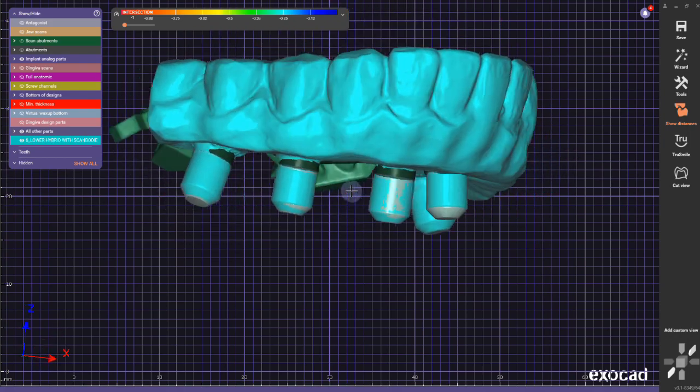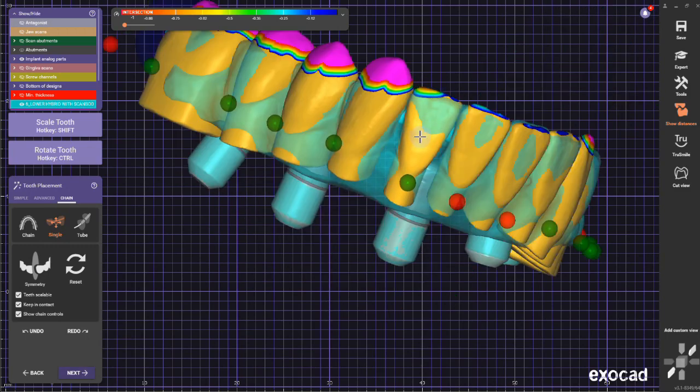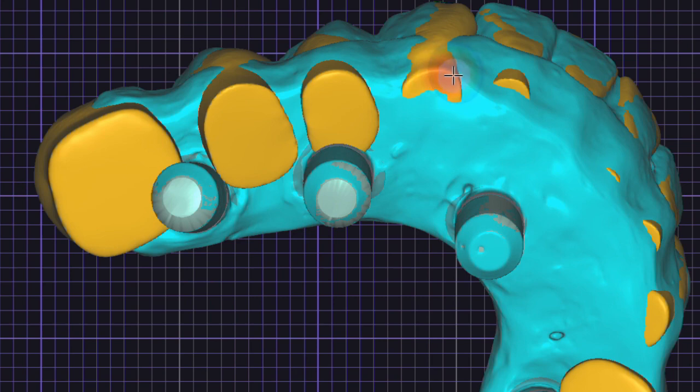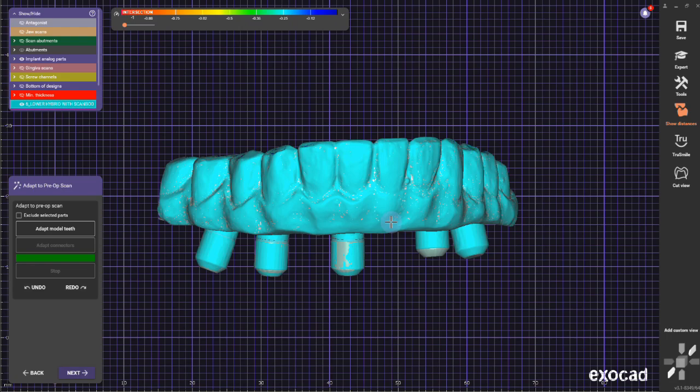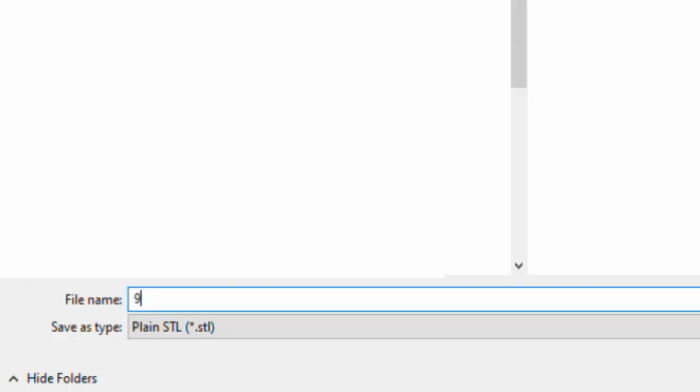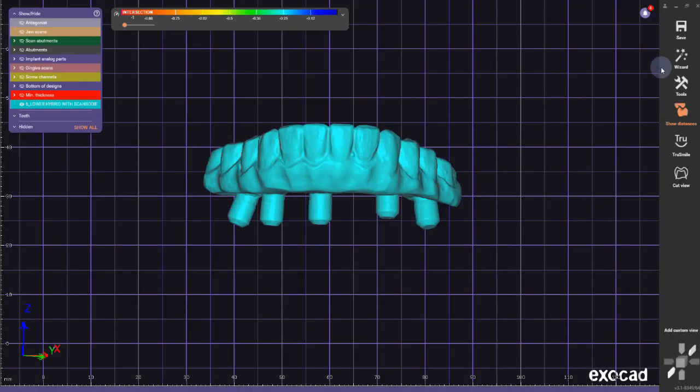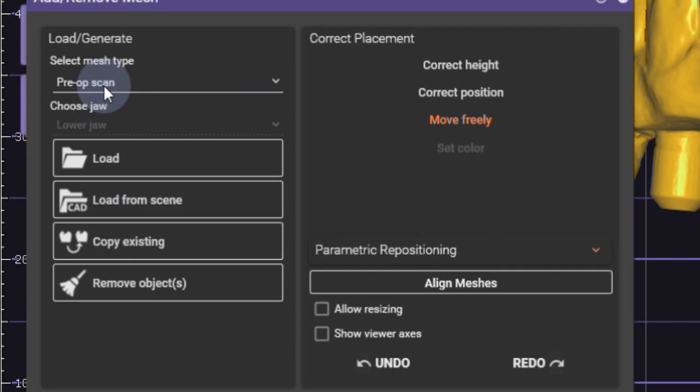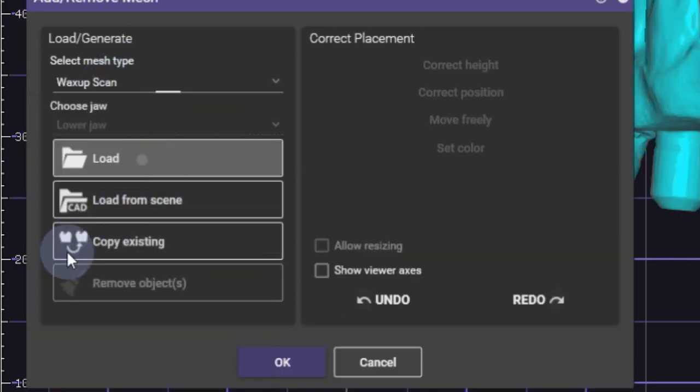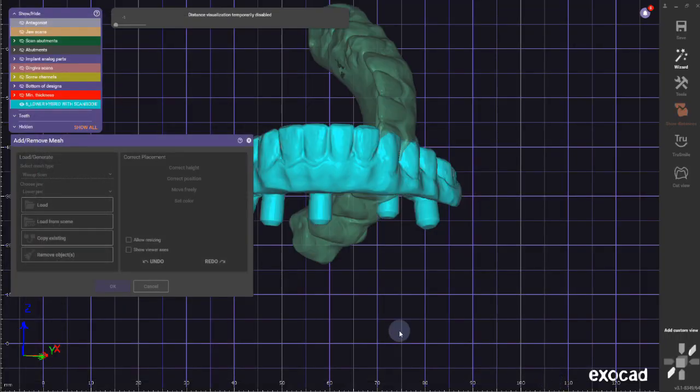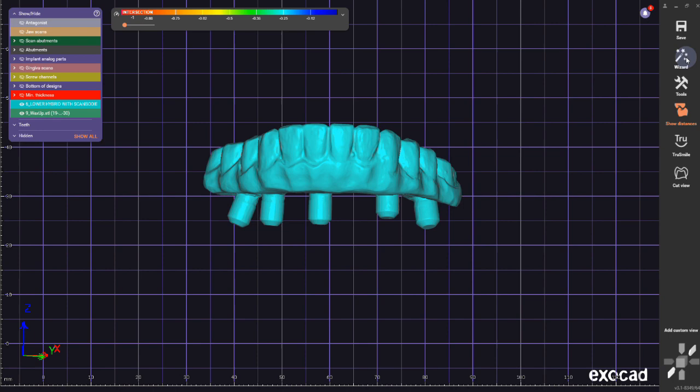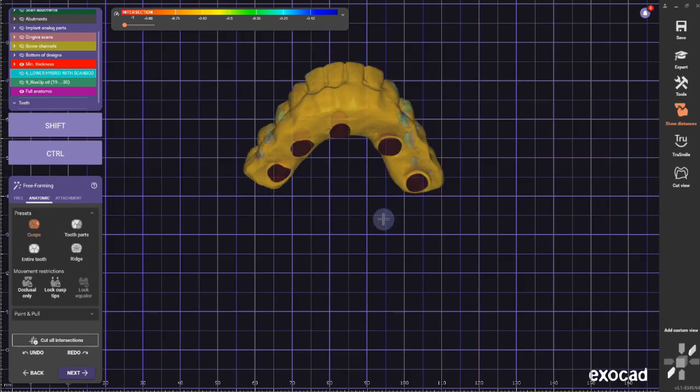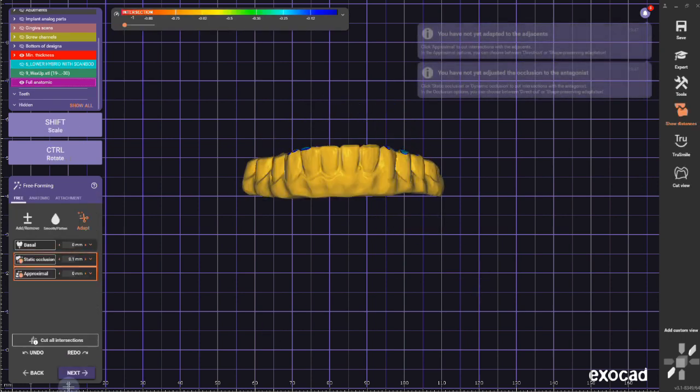You can use this if your tissue is compromised right after surgery or you don't have a good tissue scan. I'm going to remove everything here so it doesn't bleed through the pre-op, then adapt it. I call it wax-up scan and save it out in the same coordinate system. Then I can add or remove mesh, select wax-up scan, and load it in. It will align in the exact same position as my pre-op, and I can treat this wax-up scan as a regular design.